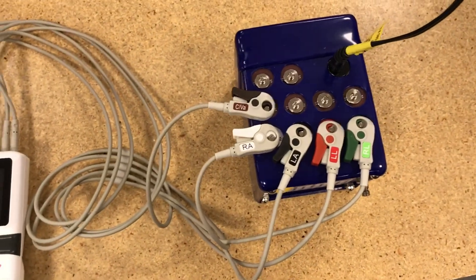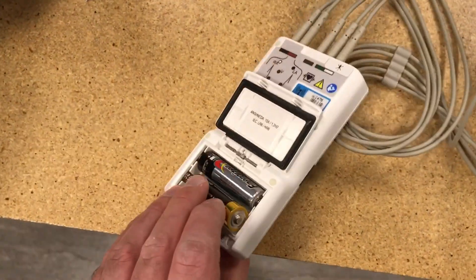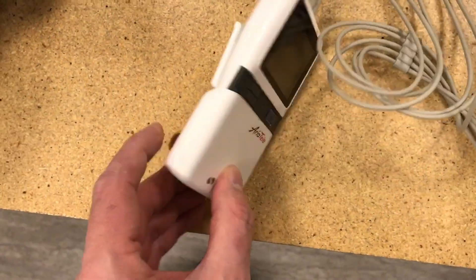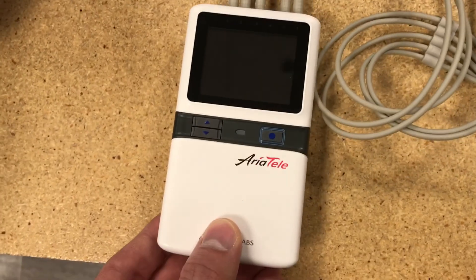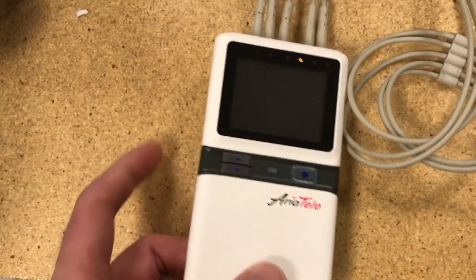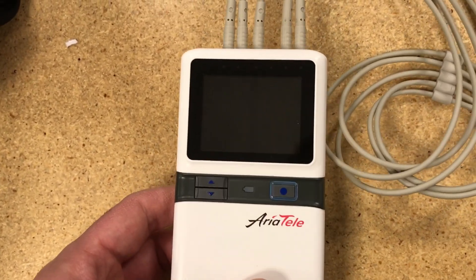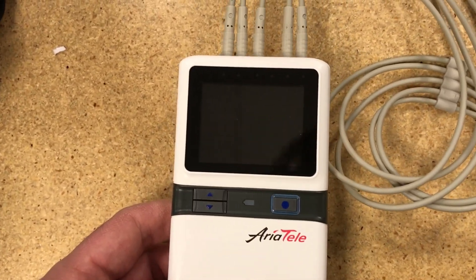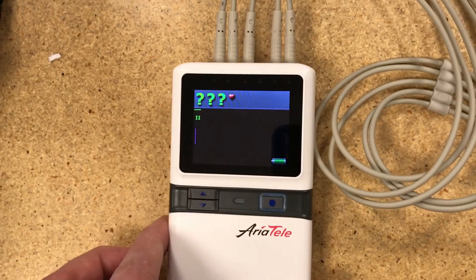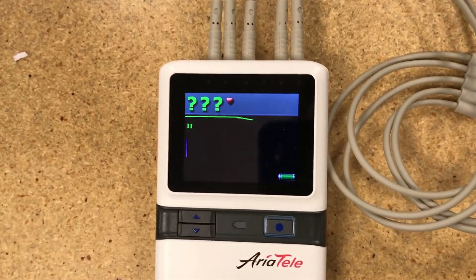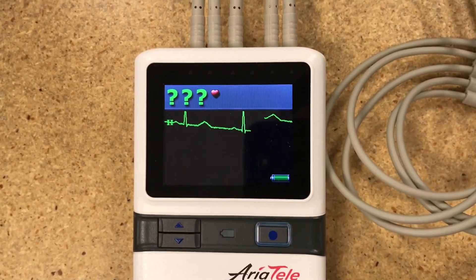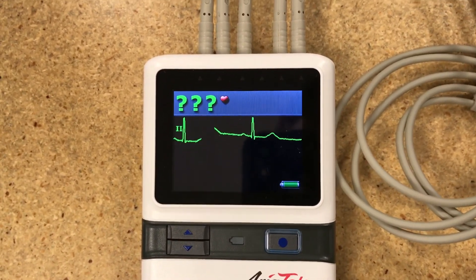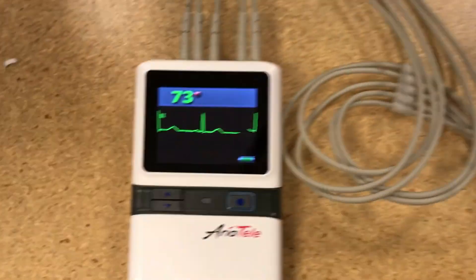Okay, so now I have everything wired up. I'm going to have one battery in and one almost in. I'm going to show you what happens when you put the final battery in and it turns on. So now the battery's in. You might have seen the lights flash pretty quick. And now it's going to start receiving trend information from the patient monitor or from the simulator over here.